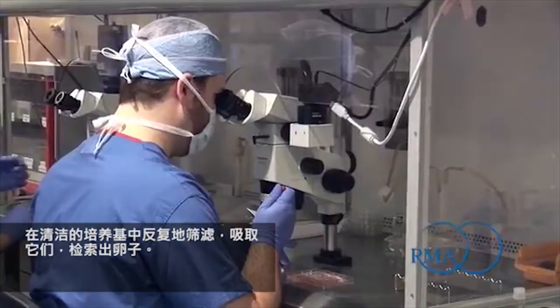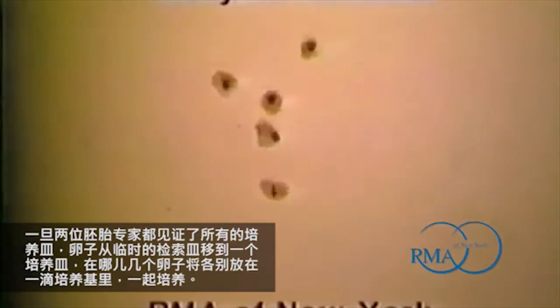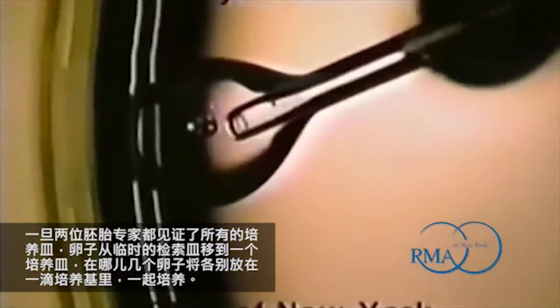The retrieved eggs are washed by pipetting them repeatedly through clean culture media. You can see a single egg being pipetted here. The egg itself can be identified as a small dark circle surrounded by the translucent supportive cumulus cells. Once all the eggs have been retrieved and thoroughly washed, each egg will have some of the surrounding cumulus cells carefully dissected off to further prepare the egg for culture in a micro environment. After some of the cumulus is dissected off, the eggs are gathered together and maturity of the eggs is assessed. Once all dishes have been witnessed by two embryologists, the eggs are moved from a temporary retrieval dish into a culture dish where a few eggs will be cultured together in each media drop.